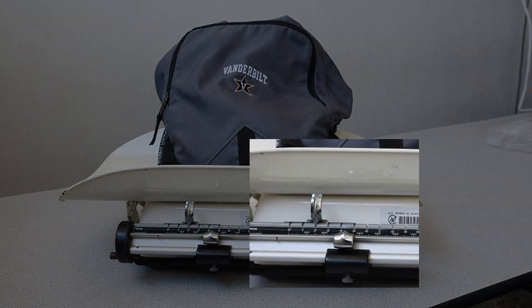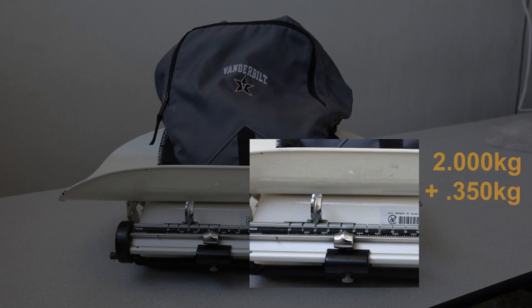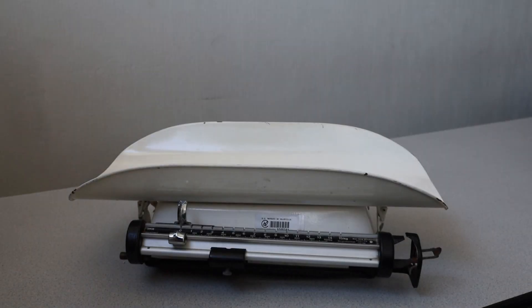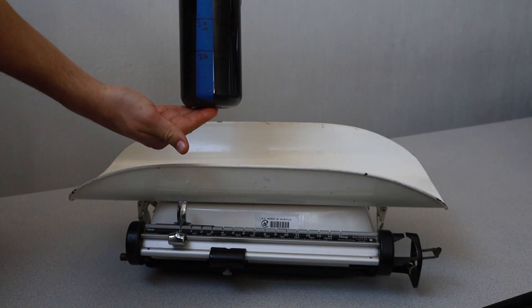For example, the weight of this object is 2 kilograms plus 350 grams, which is 2.35 kilograms.